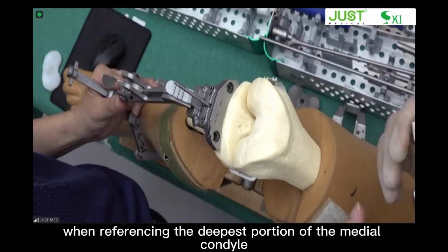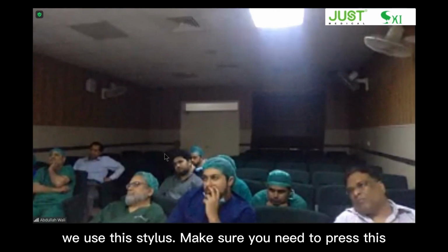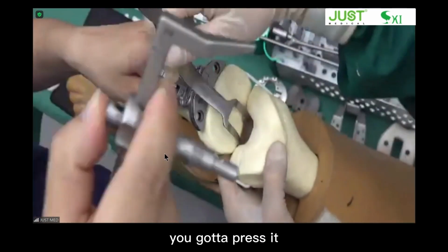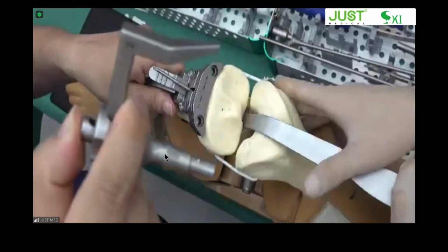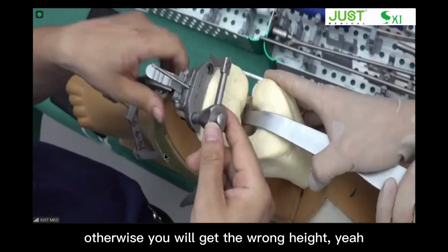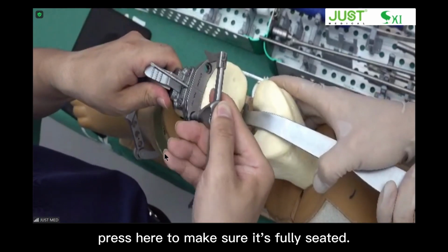When referencing the deepest portion of the medial condyle, we use this stylus. You need to press this to the end. You got to make sure it's fully seated. Otherwise, you will get the wrong height. Yeah, you got to press here to make sure it's fully seated.